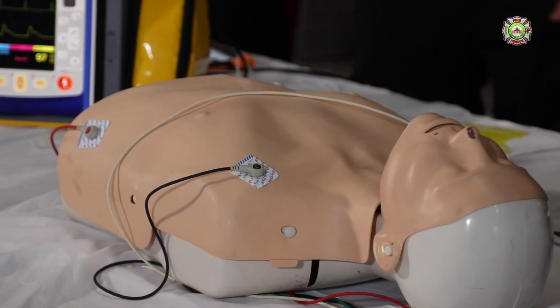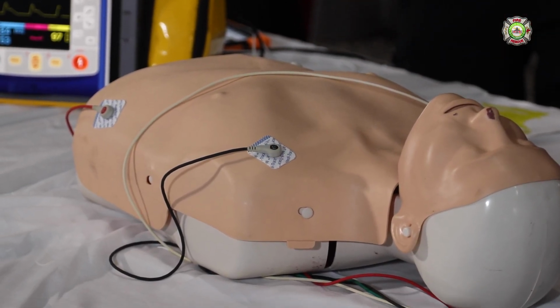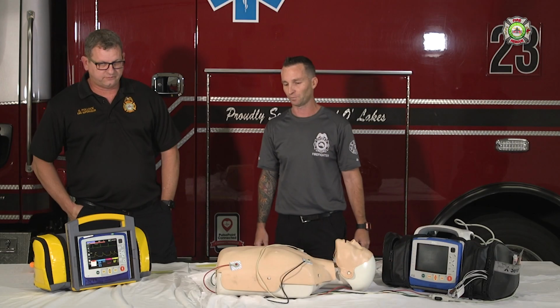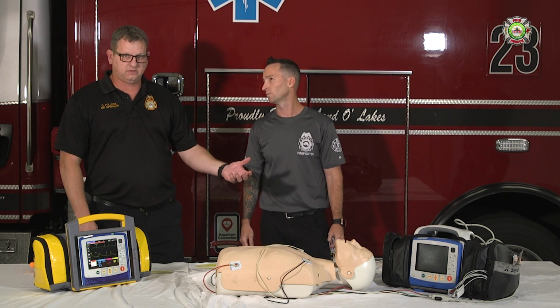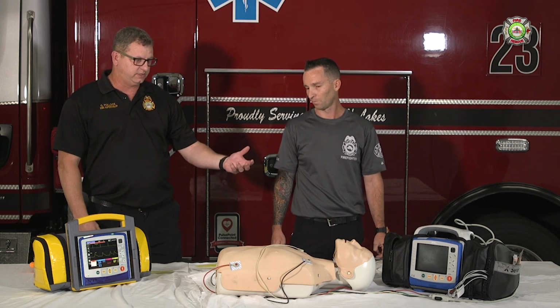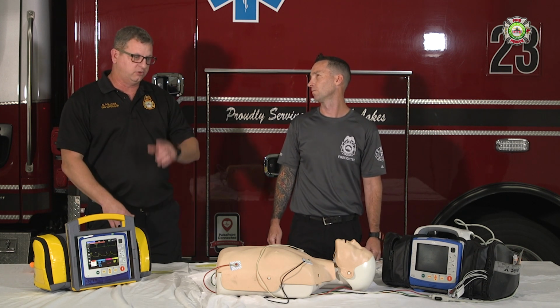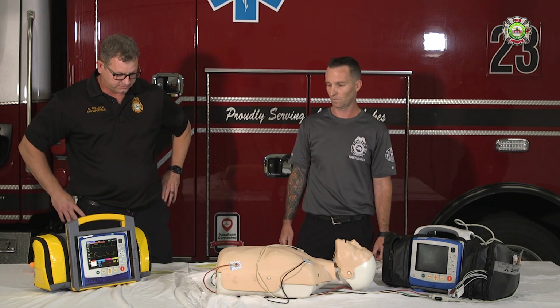First thing we want to hit on is that the four-lead needs to be on and preferably the limb leads. So we want them on the arms, not the legs, not the chest. The reason for that is the pads can only do one thing at a time. If they're sending an impulse through them, that's what they're doing. The leads are there for visualization of the rhythm. In contrast to a defibrillation, where you'll see a one-time occurrence of electricity, it goes back to monitoring the rhythm. So that's why the leads are imperative.